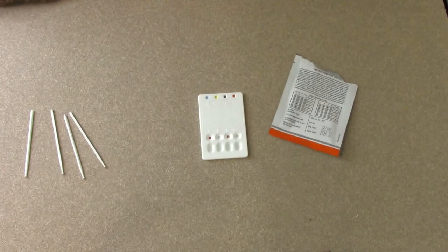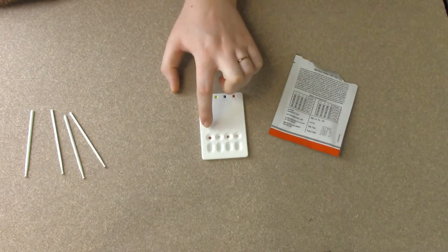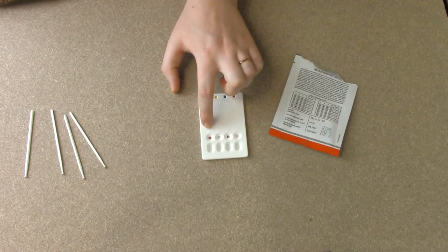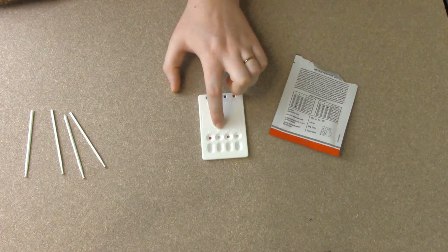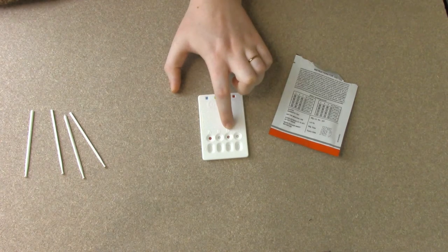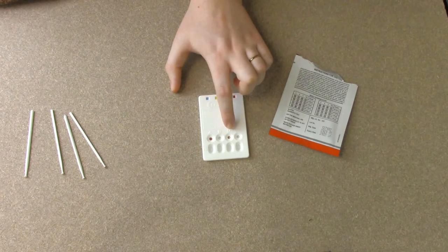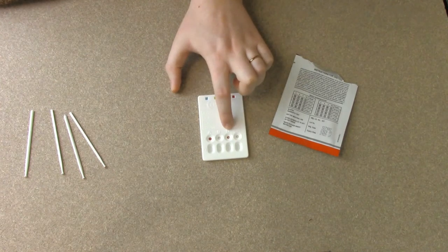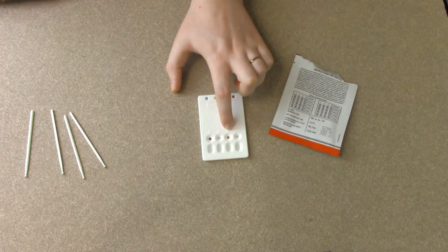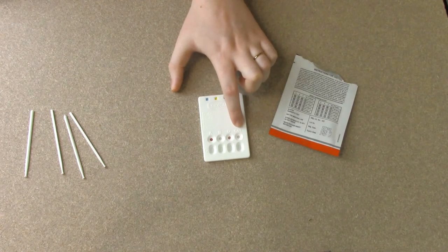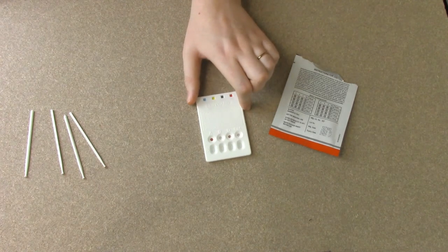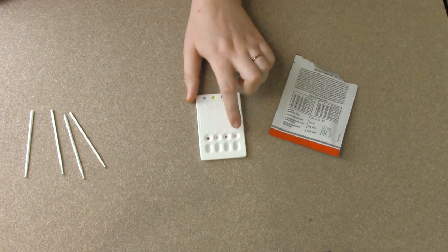It looks like my results are ready. So we have my A well has stayed red. The B has completely cleared and become colorless. D has stayed red as well, although I didn't get quite enough blood in it, but you can tell that it's not colorless. And the control is colorless, meaning that this is a valid test, that it worked properly, and we can trust the results.